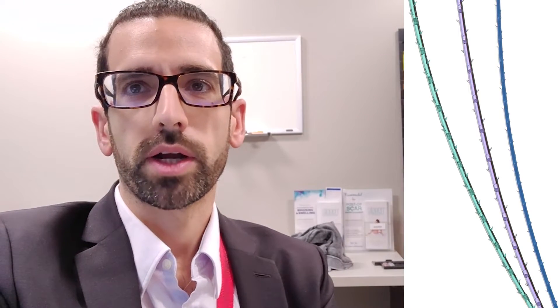I'm an expert in body contouring and I do a lot of plastic surgery after weight loss. I use it on almost every closure that I do for these patients.